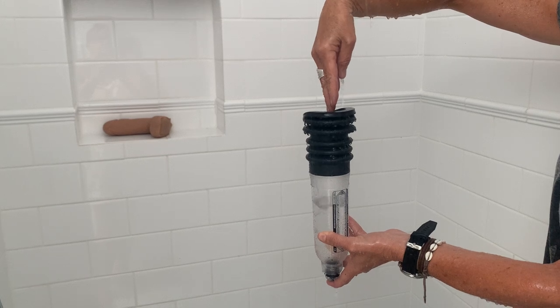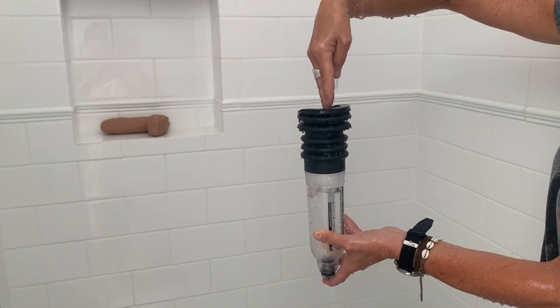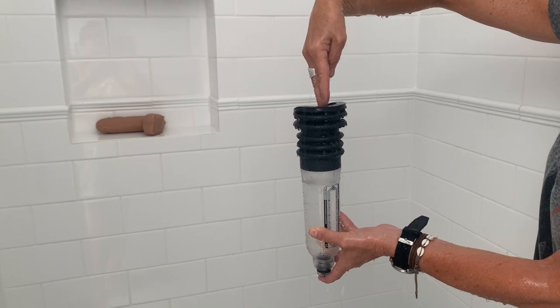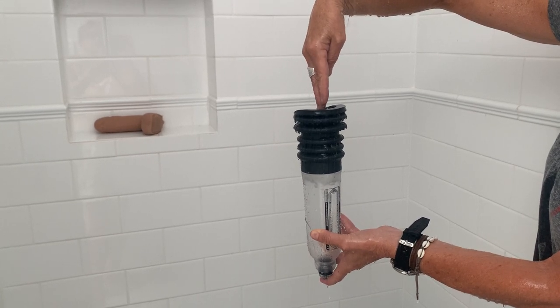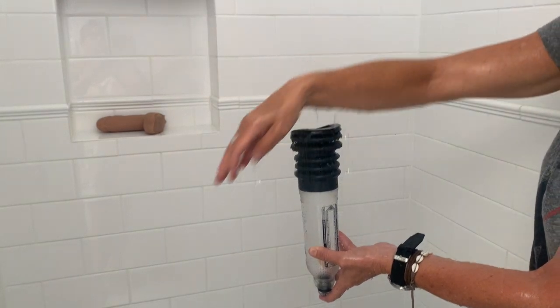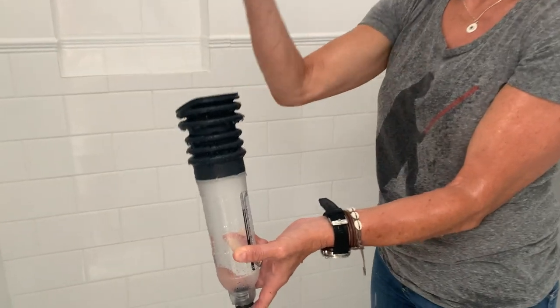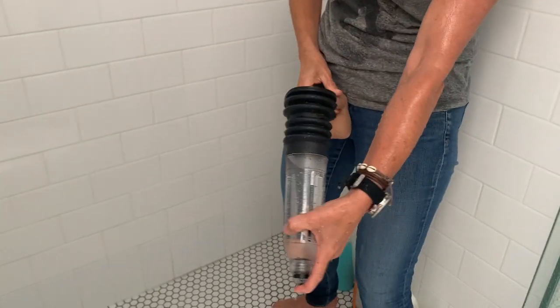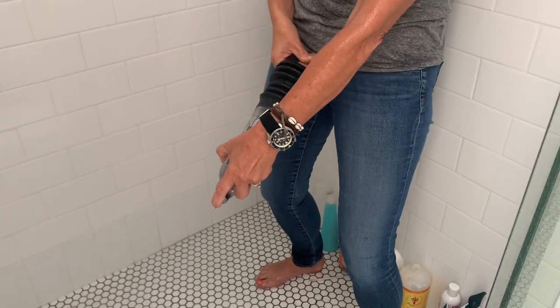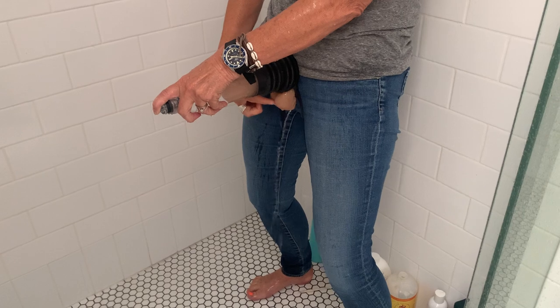You're going to fill it all the way up to the top because it's the water that creates the action. Now as you can see I'm wearing clothes, so I'm going to turn the shower off so you can hop in the shower. Then you get Geoffrey, or whatever yours is called — he's there, still holding the little toggle at the bottom. You pop your penis in and then put it flat with your testicles hanging underneath.